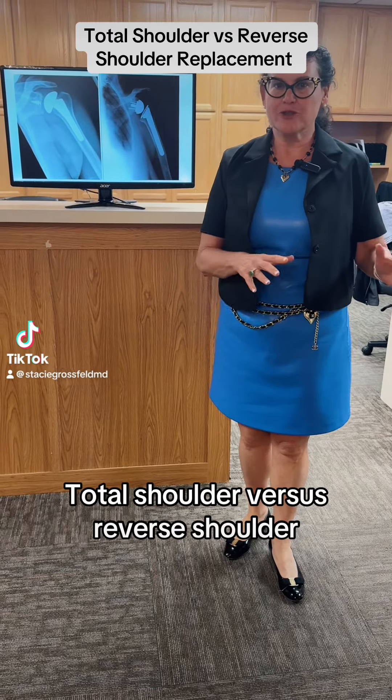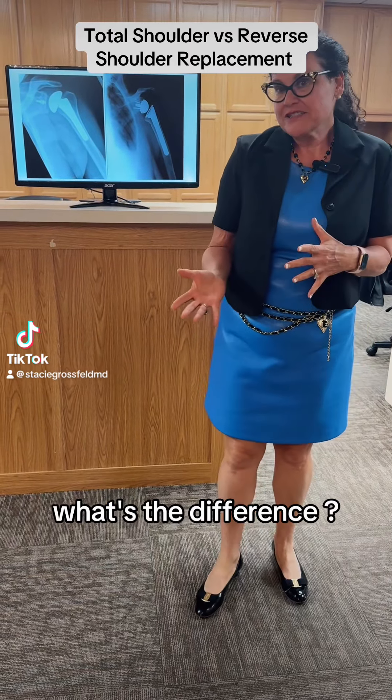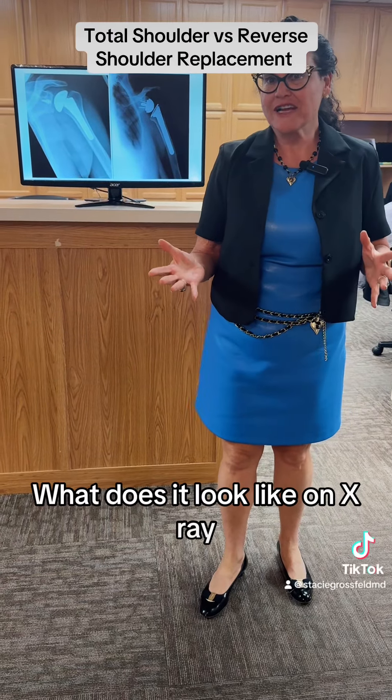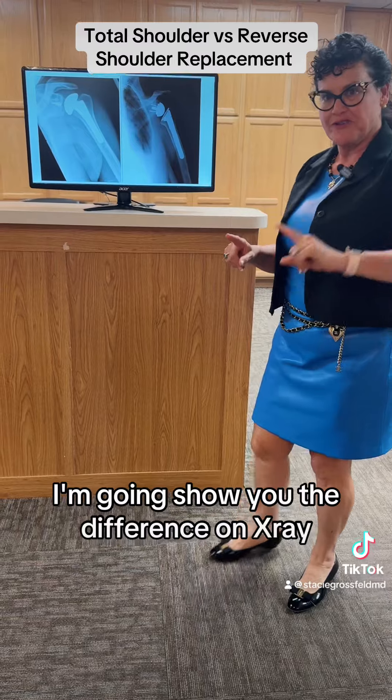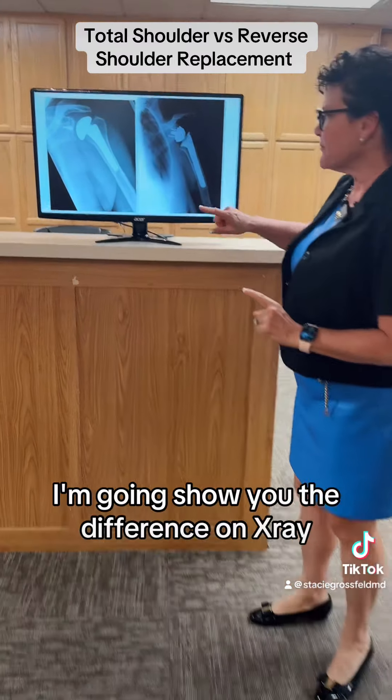Total shoulder versus reverse shoulder — what's the difference? What does it look like on x-ray? I'm going to show you the difference on x-ray.